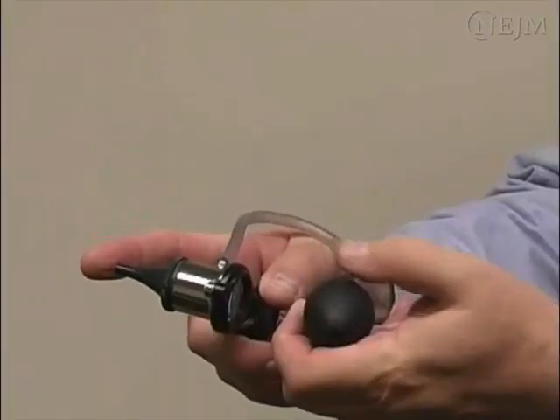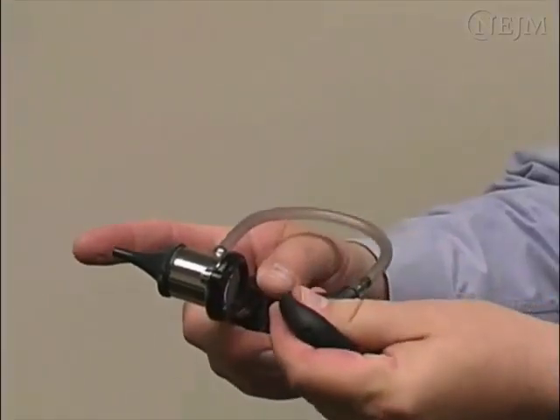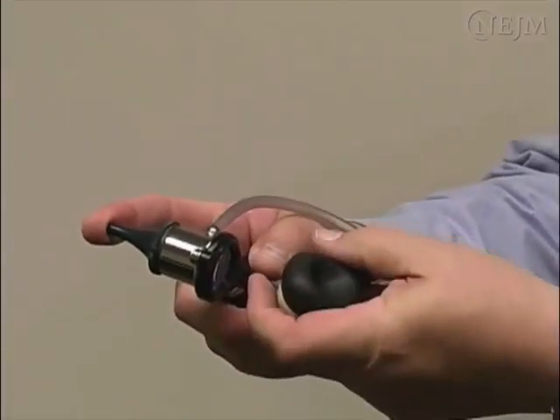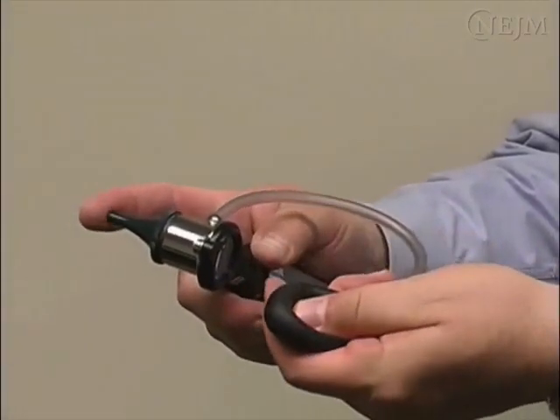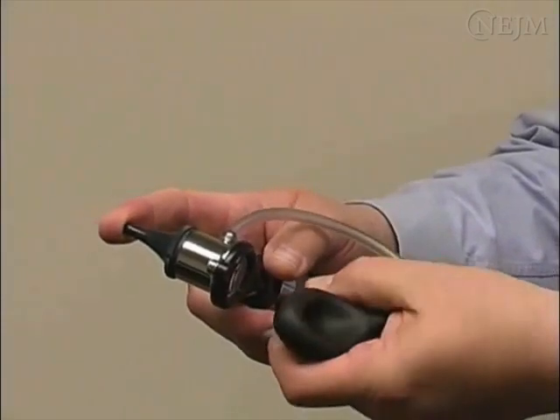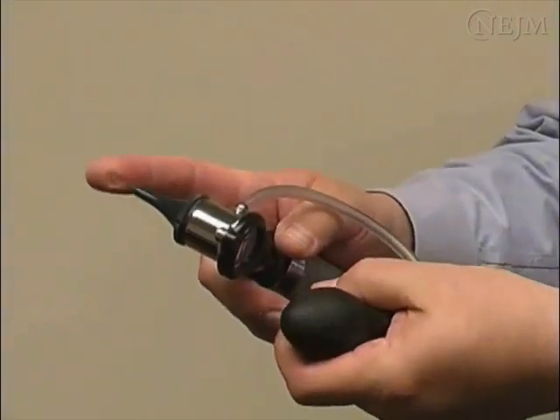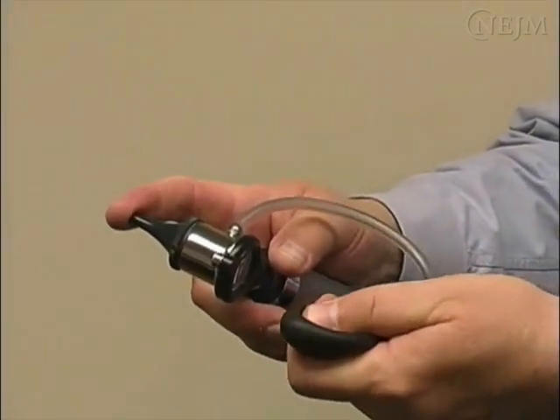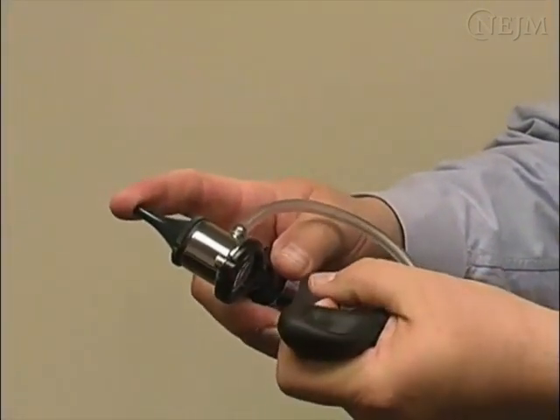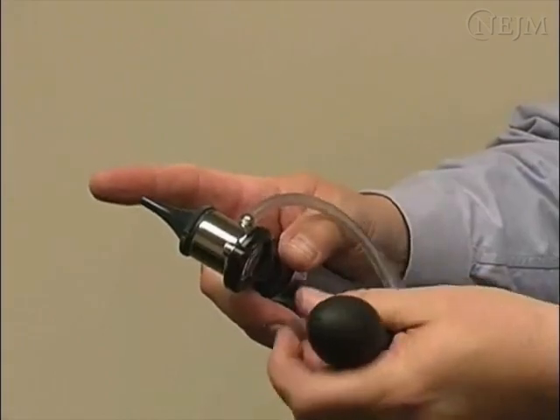To ensure that there are no leaks, squeeze the rubber bulb and then place your finger on the tip of the speculum. In a system with no leaks, the bulb should stay deflated until the finger is removed.